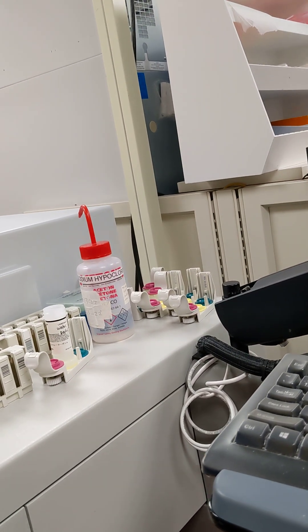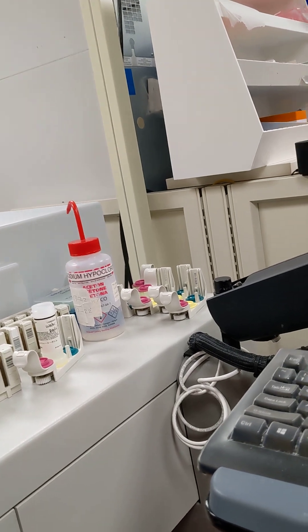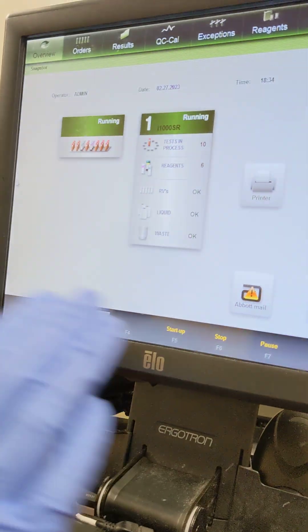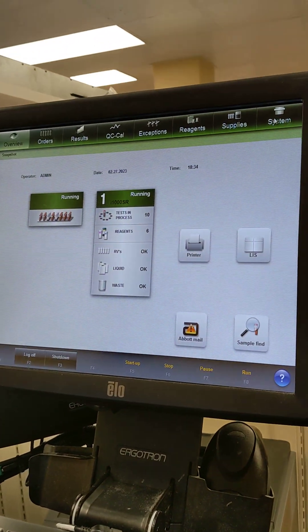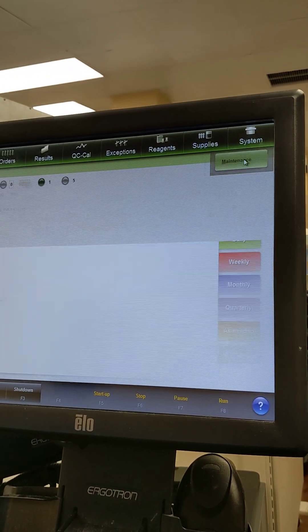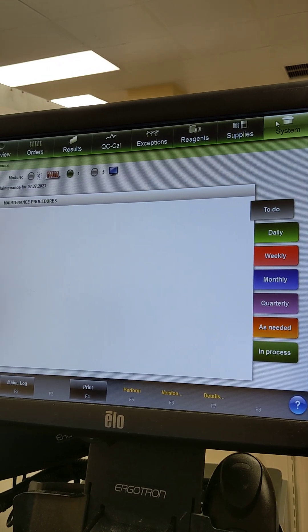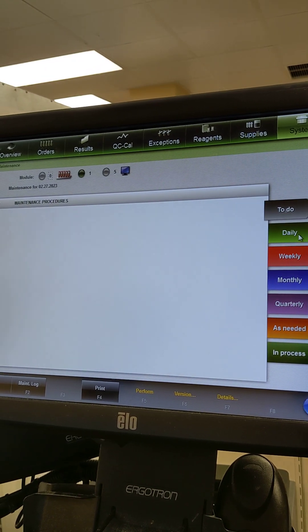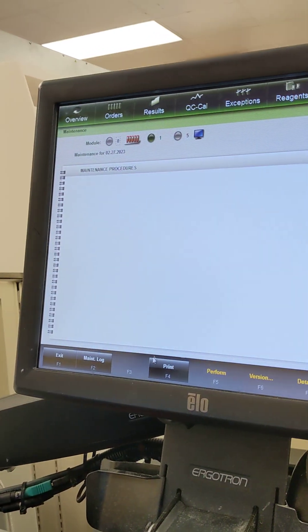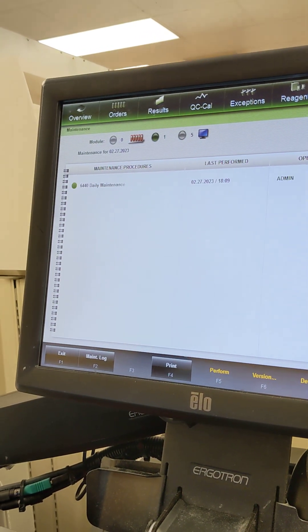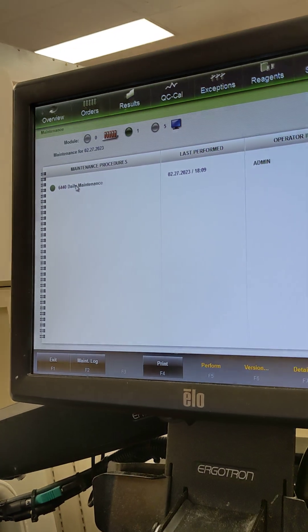It needs to be done in maintenance, right? So can you show me how? If I go to maintenance now, it's not gonna let me. No, I'm just here, somewhere here, right? In system, daily. Yeah, you go to system to daily, then it's gonna go to maintenance, but it's not gonna go to maintenance. I mean, how is the function called?